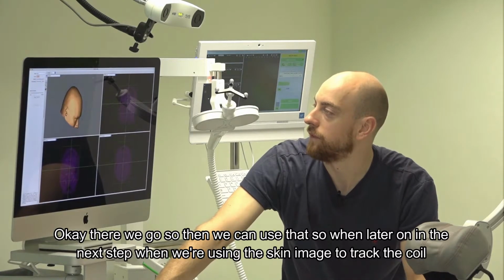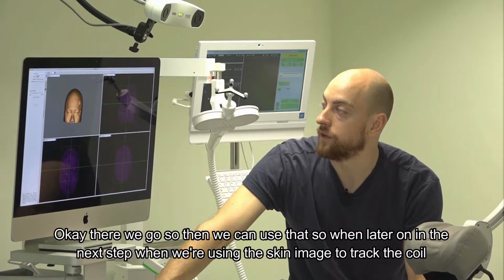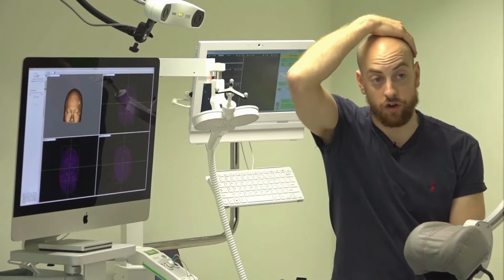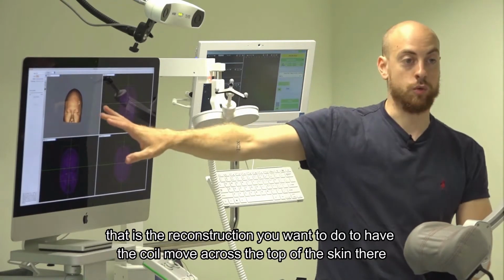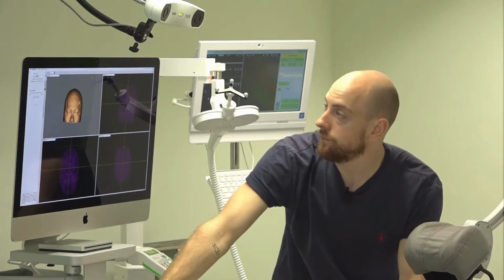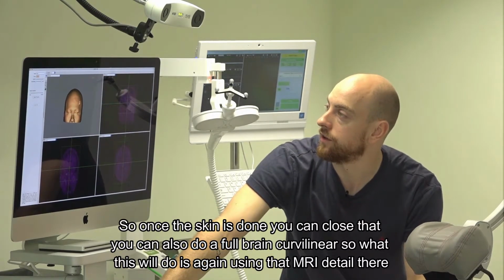Okay, there we go. So then we can use that. When later on in the next step we're using the skin image to track the coil, that is the reconstruction you want to do to have the coil move across the top of the skin there. So once the skin's done, you can close that.